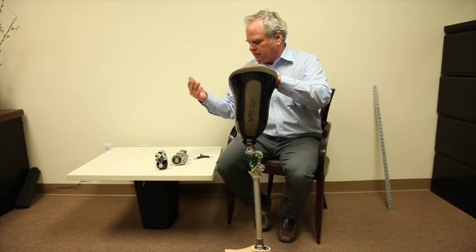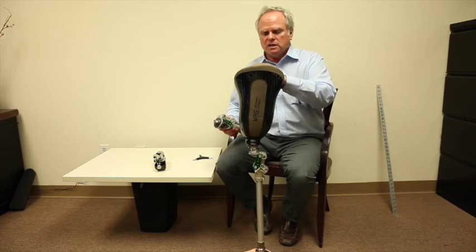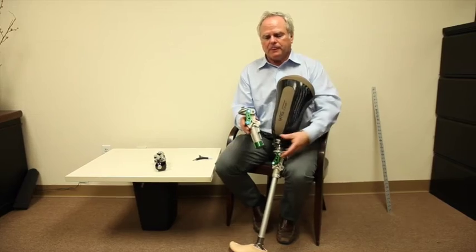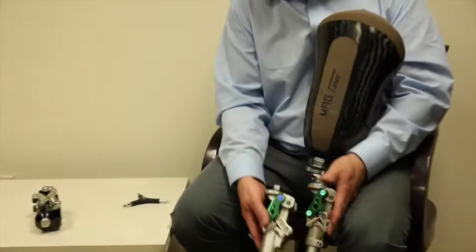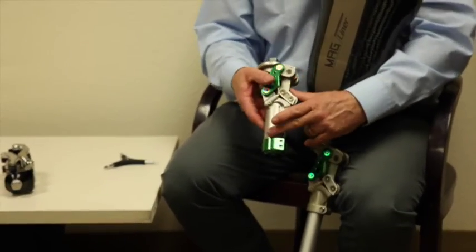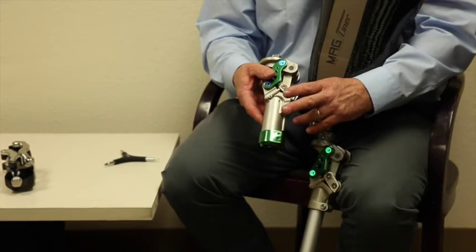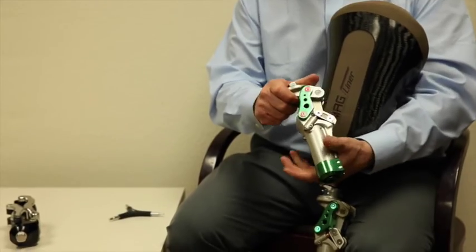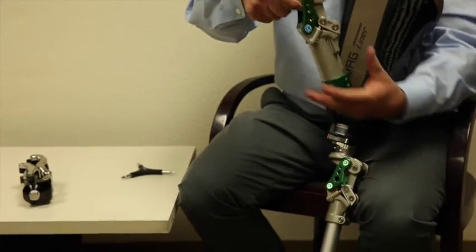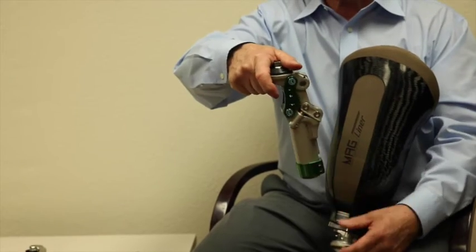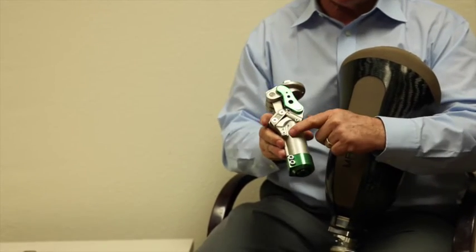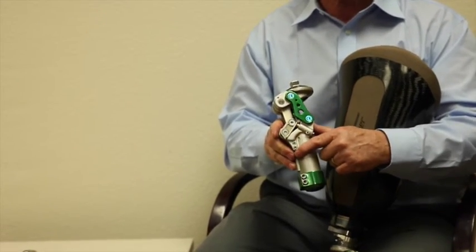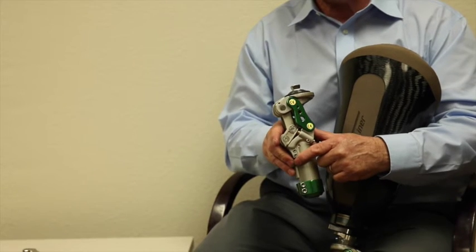Now I'm saying that this is adequate for the K2. To go into the K3 we have the exact same knee but with a pneumatic unit attached to it. And the pneumatics will give you the ability to come out of extension assist slowly. So when I let this go it's just a nice slow reaction and that is tunable by the prosthetist for extension and flexion.